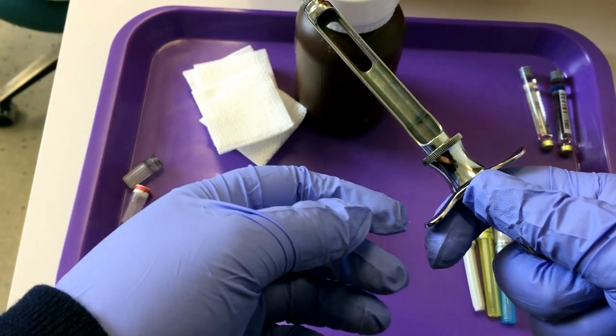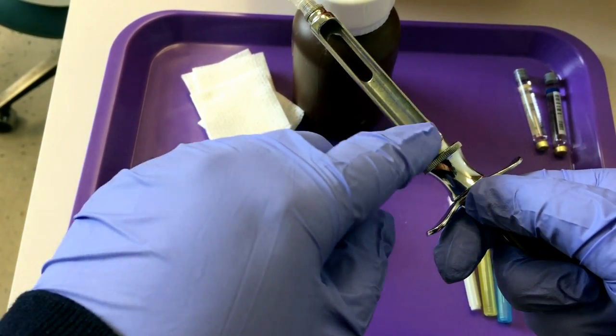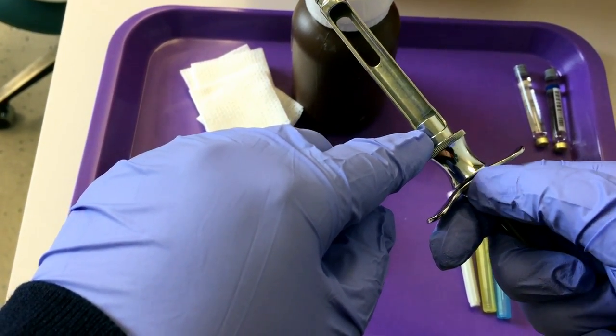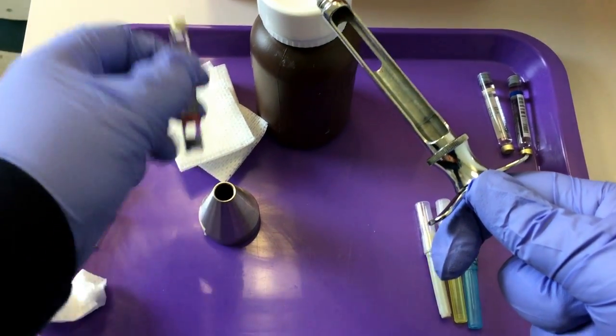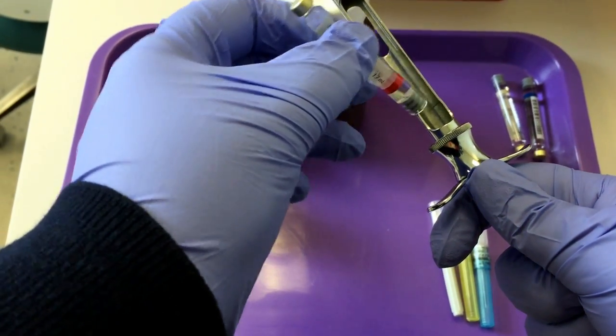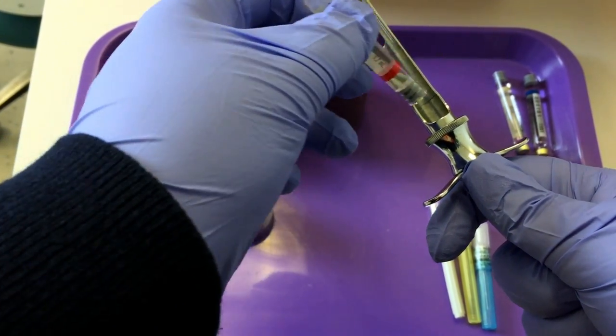While you do that, this metal cylinder will disappear. So we retract that metal cylinder, pick up our carpule, and insert it rubber stopper down.